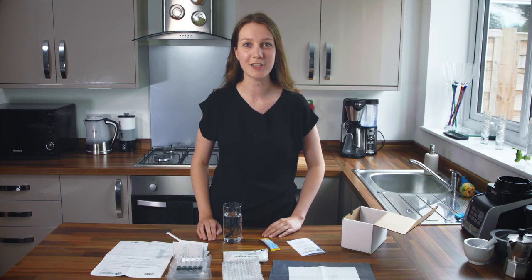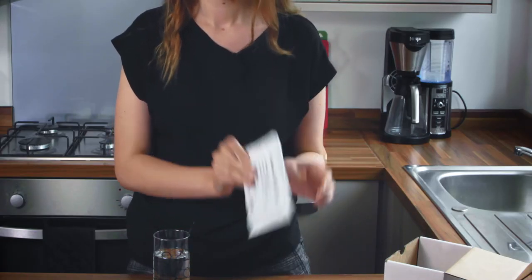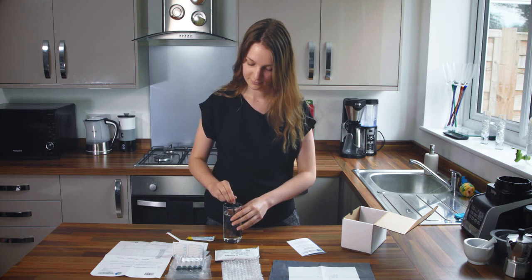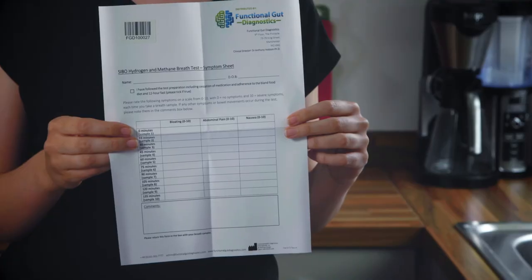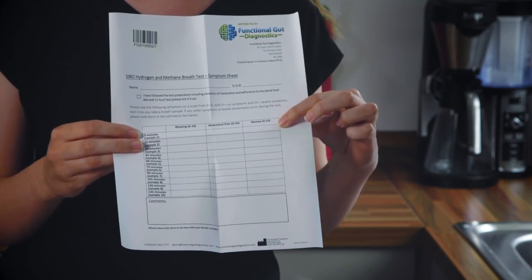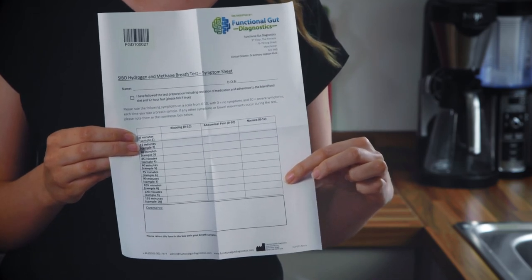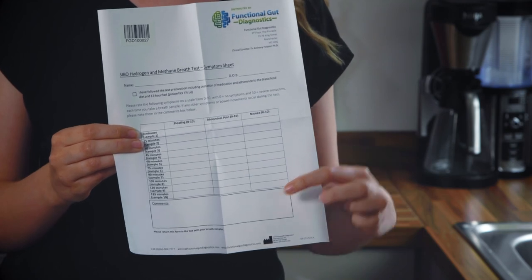Once you've finished the necessary preparation you are ready to begin. Your kit will contain either a lactulose packet or a glucose packet. You need to mix this sugar with room temperature water until the sugar dissolves. Then set this drink to one side — do not drink it yet. Next, fill in your symptom sheet with your name and date of birth. In the top line of the table, fill in your baseline levels of symptoms of bloating, abdominal pain and nausea. You should rank these symptoms on a scale of 0, being none at all, to 10, being the worst you've ever felt. As you take each sample during the test, make sure to update us on your symptoms so we can see how these relate to the levels of gas produced by your intestinal bacteria. If you experience any other symptoms during your test, just write it in the comments box below.